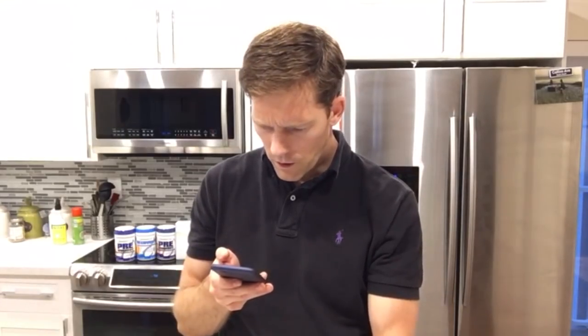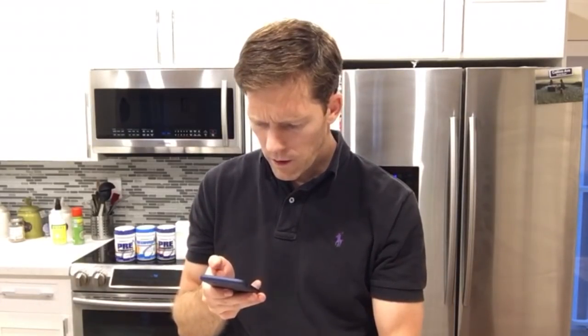Your transmitter sends sensor glucose readings to your smart device. The next few screens will walk you through how to connect your transmitter to your smart device. Bluetooth on, I understand, next. Then you have to get to the transmitter serial number. This is pretty similar to the old setup process with the G5. You're gonna either enter it or take a picture because it's a little bit longer — the transmitter serial number. So I take a photo, allow G6 to access the camera, and take a photo of that.